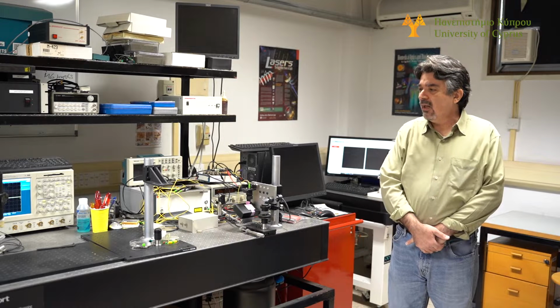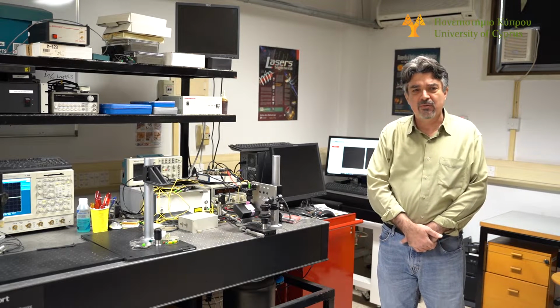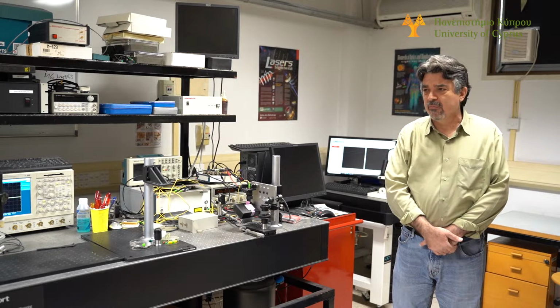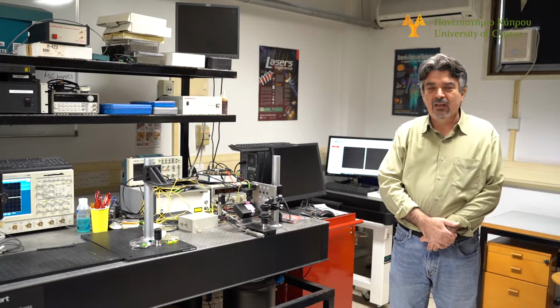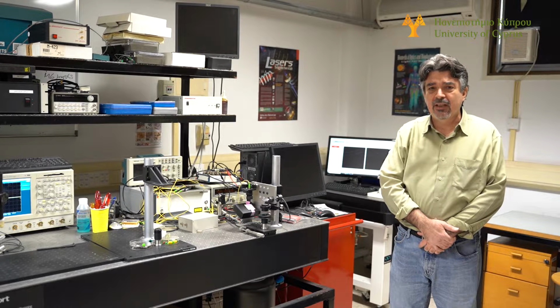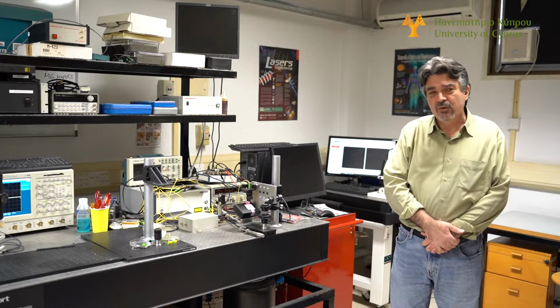In this lab, we have 3 graduate students, 1 postdoctoral student, and 4 undergraduate students working on several aspects of the project. Not all of them work on the hardware, some work on the analysis algorithms and artificial intelligence, which we combine with the data that we capture to create the novel diagnostics.